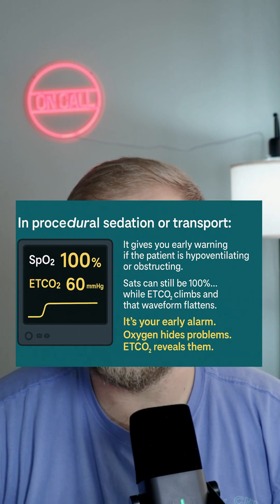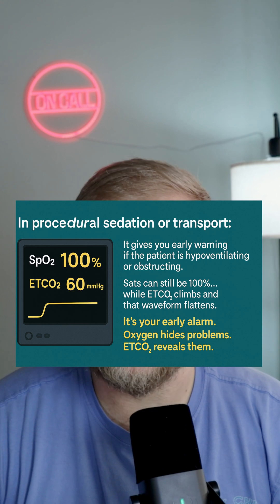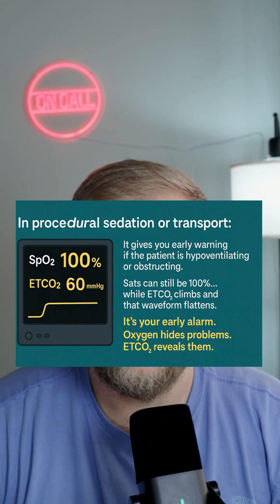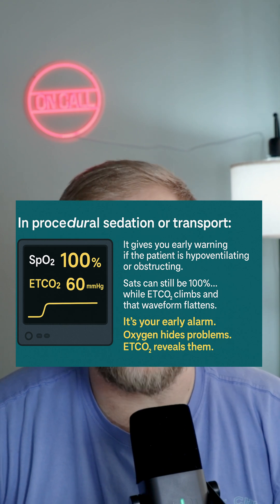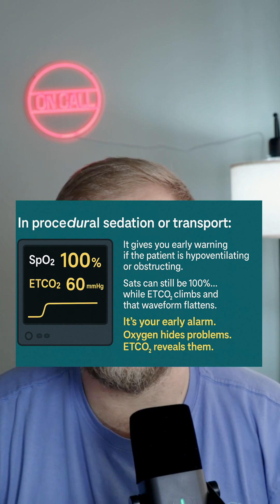So how would we use it during procedural sedation, maybe giving a narcotic or even during transport? It gives you an early warning sign that the patient is hypoventilating or even obstructing. The sats can still be 100, but the end tidal CO2 climbing and the waveform starting to flatten is a really big sign — an early alarm. Oxygen hides problems, whereas end tidal CO2 reveals them.